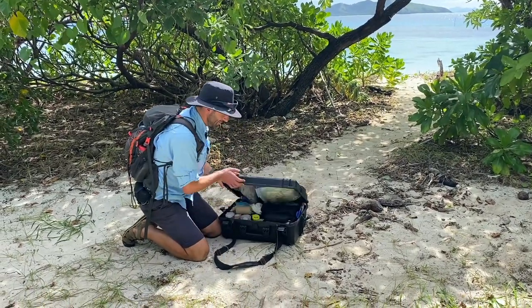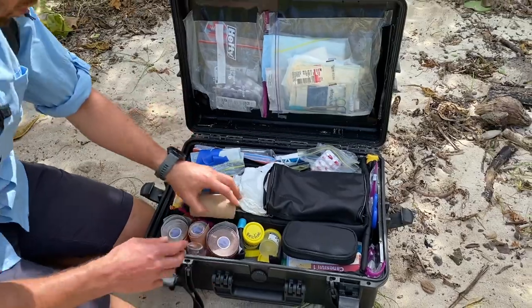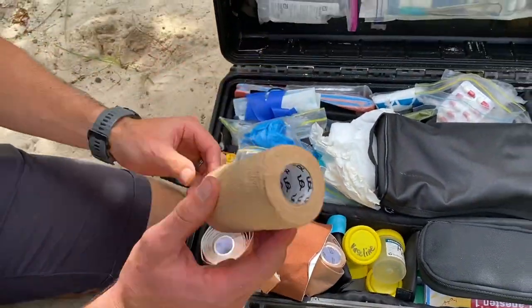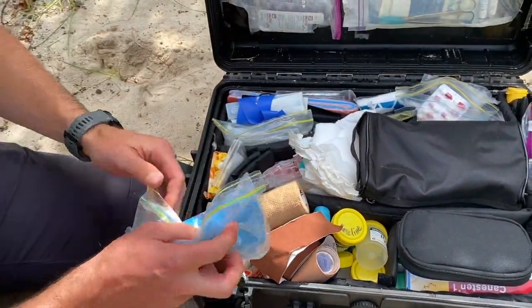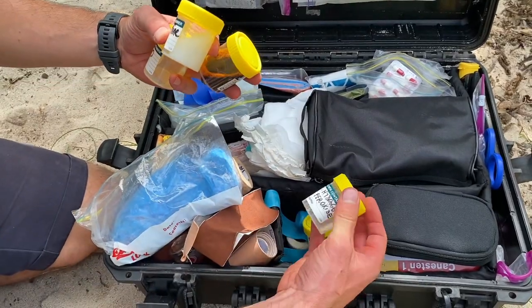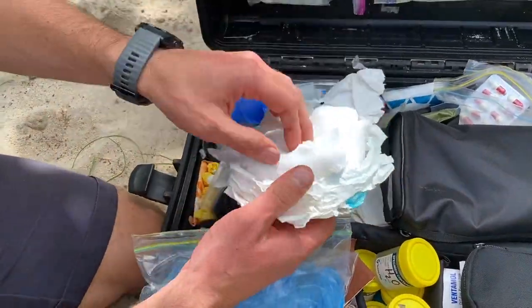Let's have a look inside. We've got wound care over here, some diagnostic stuff over there, and drugs in here. For wound care, I've got some things like Hyperfix, different kinds of taping solutions, a little bit of cohesive bandage — that's always really useful for sprains and things. I've got some gloves, and various different things to irrigate and clean wounds: just some regular water, a bit of iodine, and some hydrogen peroxide, which is really good for reef cuts.